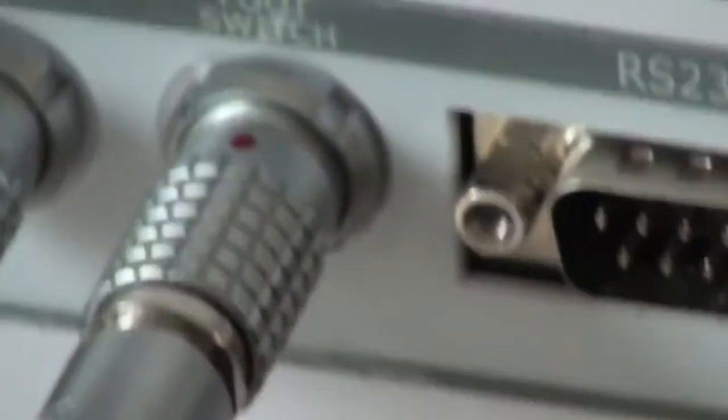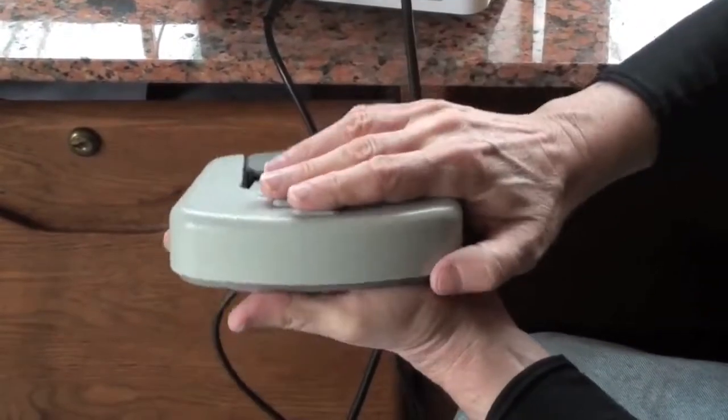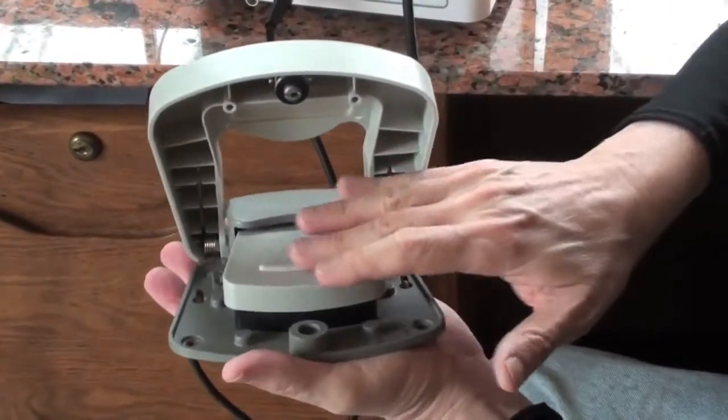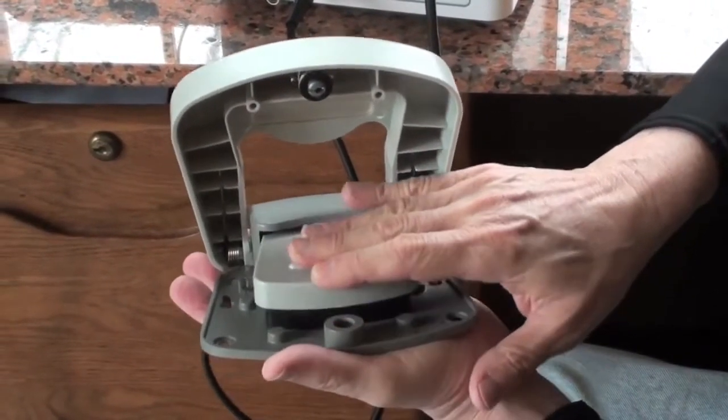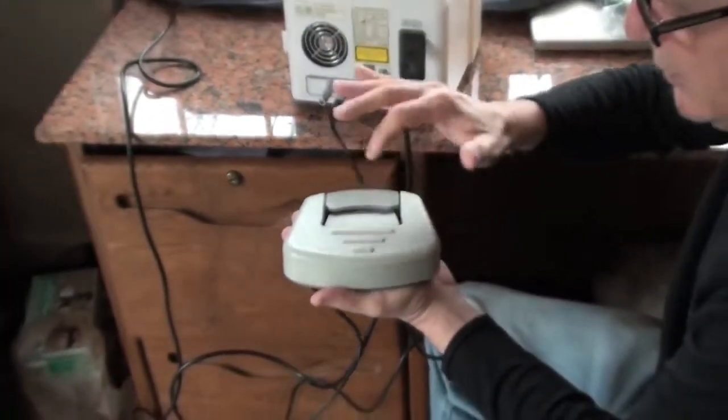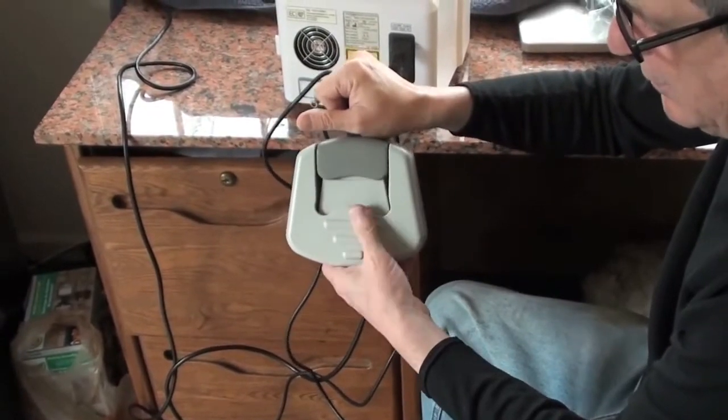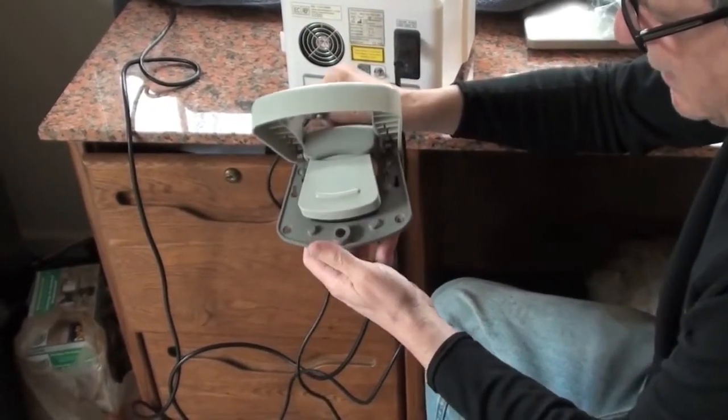This is the foot pedal. The foot pedal is used specifically for when you're doing surgical warts and when you're doing fungus toenails. You must open it up to use it. This is the area where you press your foot, we'll demonstrate that for you. If you press it when it's closed it will not function. It does appear to work with it closed because of these three little bars, but you press it, it opens up.